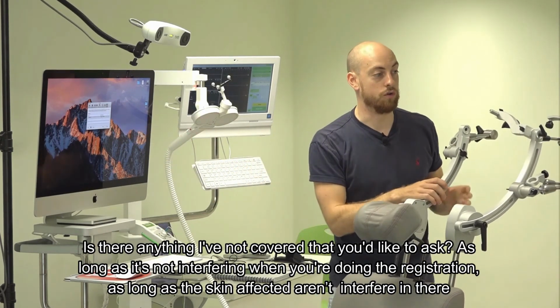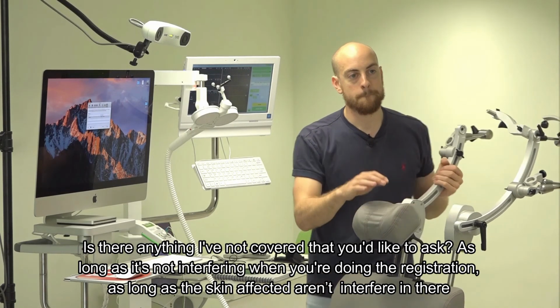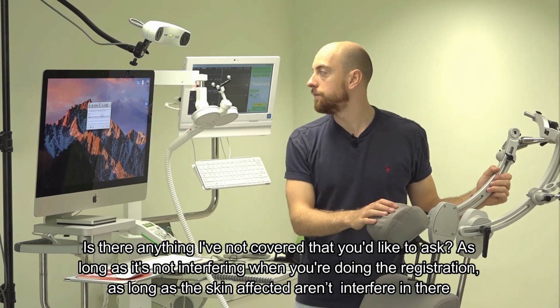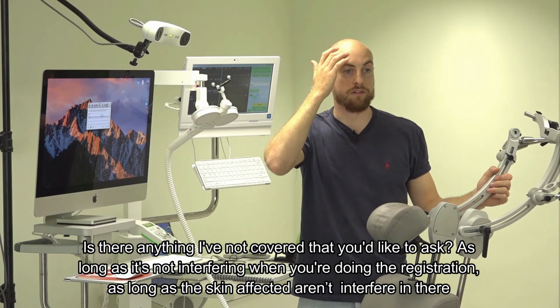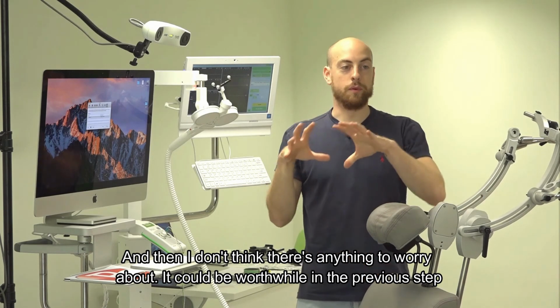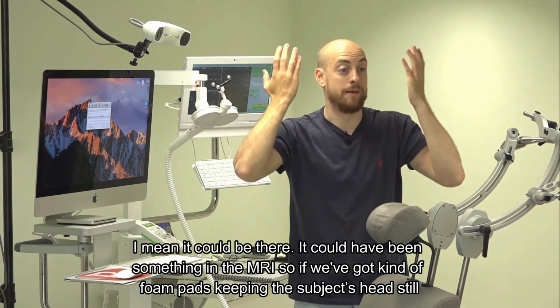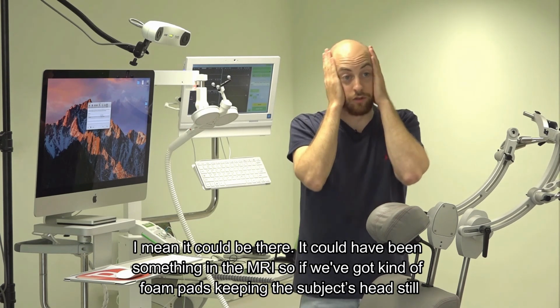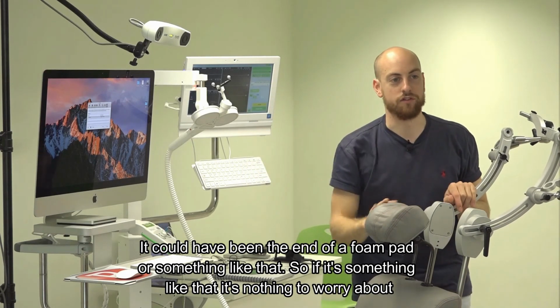Is there anything I've not covered that you'd like to ask? As you mentioned, there's an artifact in the skin reconstruction. Yeah. Is there any way to do away with it, or does it matter? As long as the skin artifact isn't interfering when you're doing the registration, then I don't think there's anything to worry about. It could be worthwhile checking the previous step. It could have been something in the MRI. If we've got foam pads keeping the subject's head still, it could have been the end of a foam pad or something like that. If it's something like that, it's nothing to worry about.